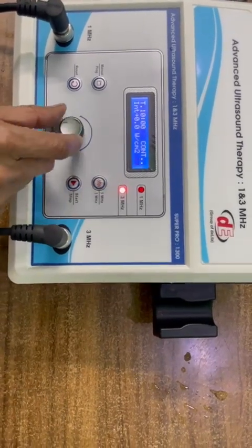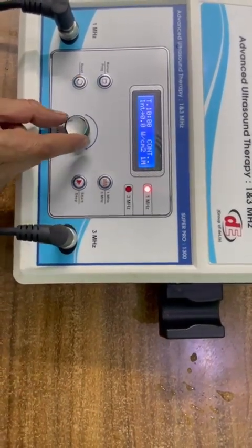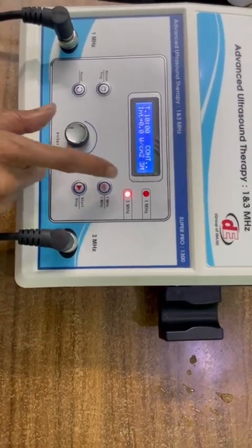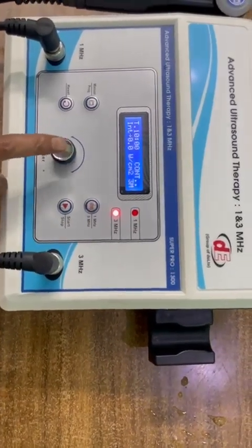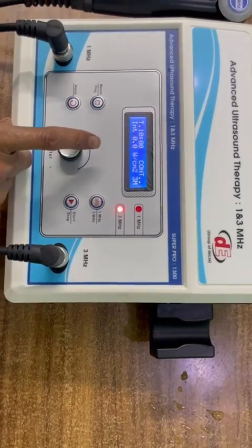Now you can set it 1 MHz. If you rotate the intensity knob it will come on 3 MHz. Now 3 MHz, this is okay. We want to test in 3 MHz.